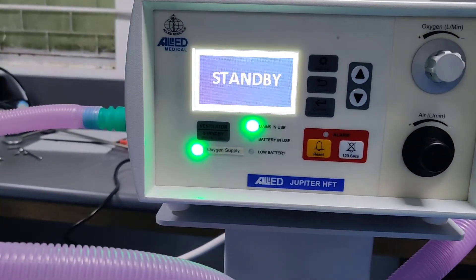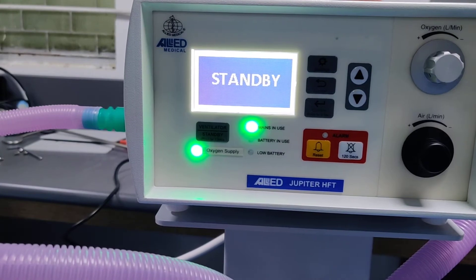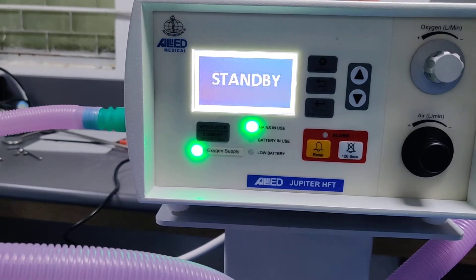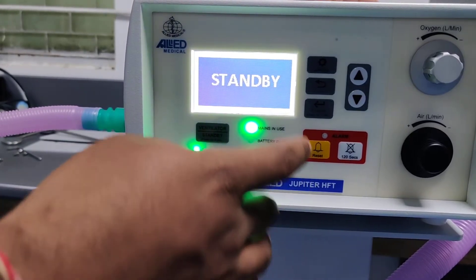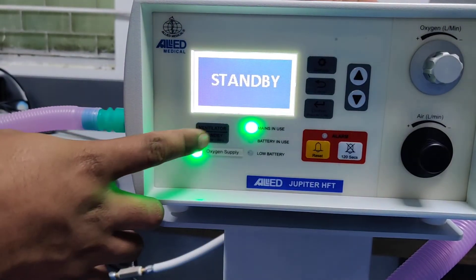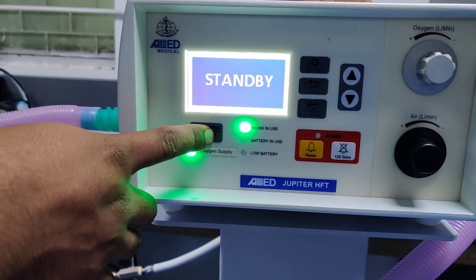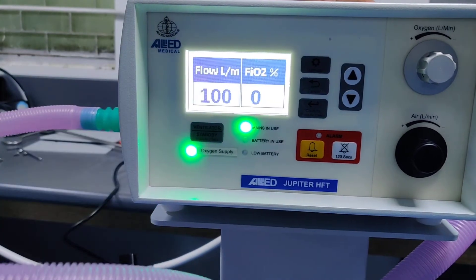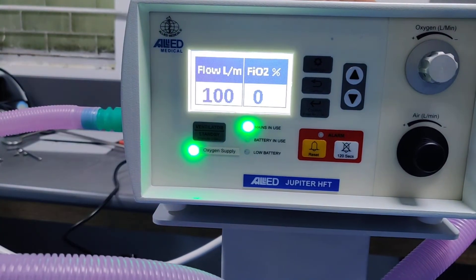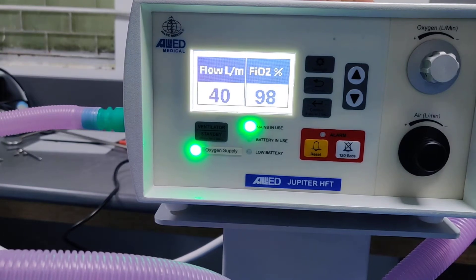The machine is currently in standby mode. To run it, press and hold this button for 2 seconds and you will get an operating window on the display.